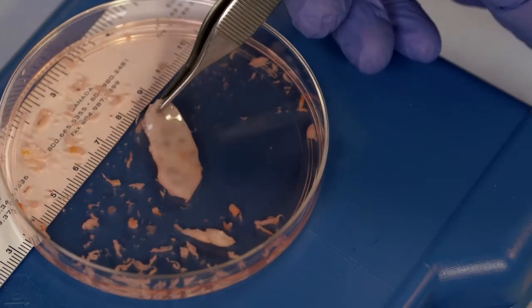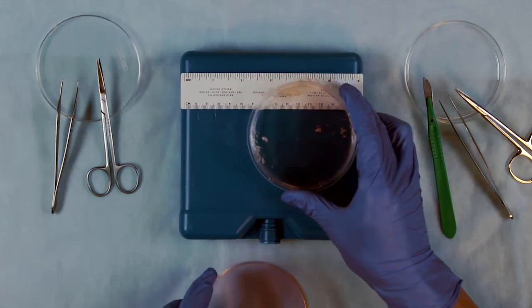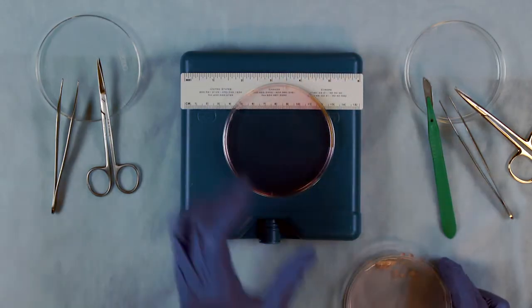After rinsing the ovarian pieces, move the pieces to a clean dish. If possible, pass the rinse media to another embryologist to look for immature COCs.